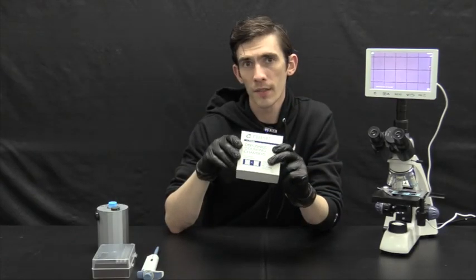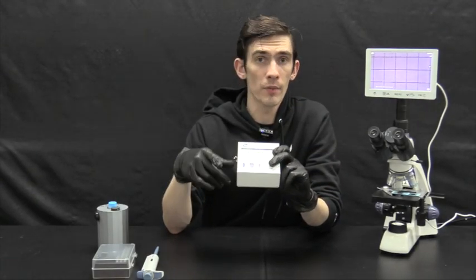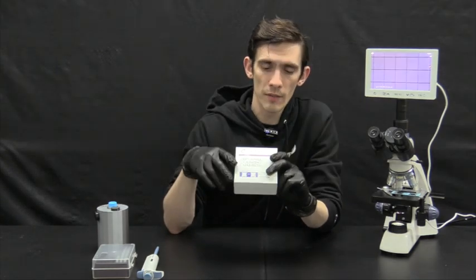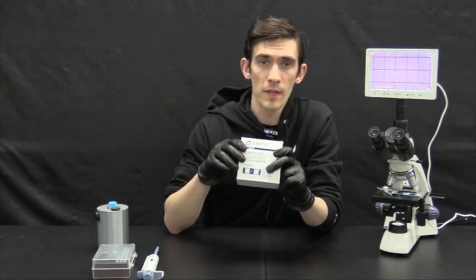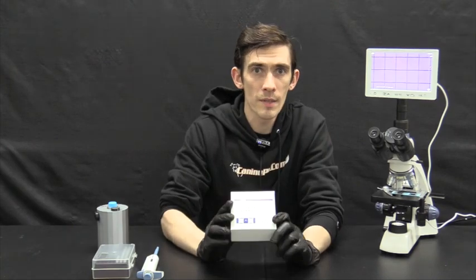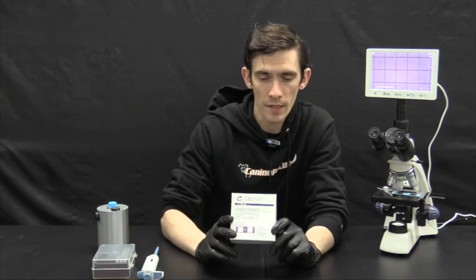This device is intended to give you an accurate raw approximation count involves very simple math and will put the quality of your stud dog semen sample on your radar and on paper.